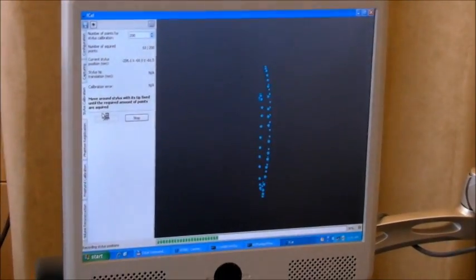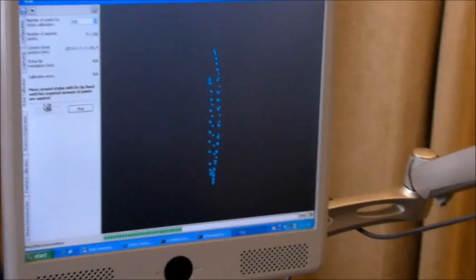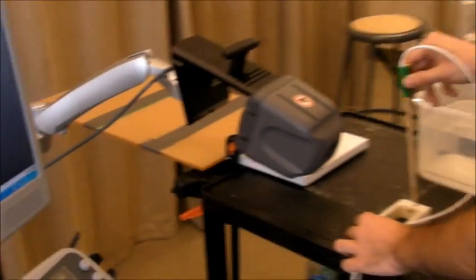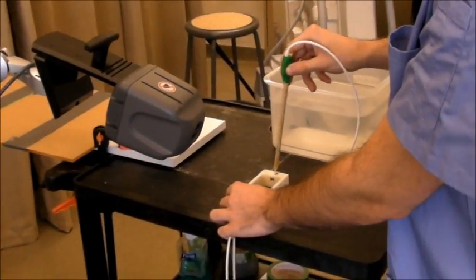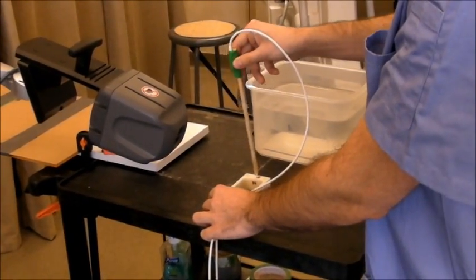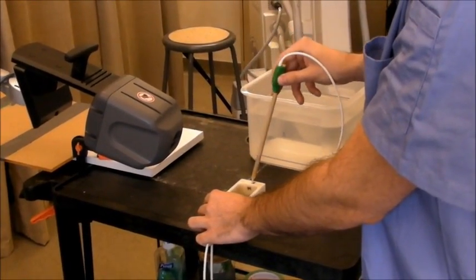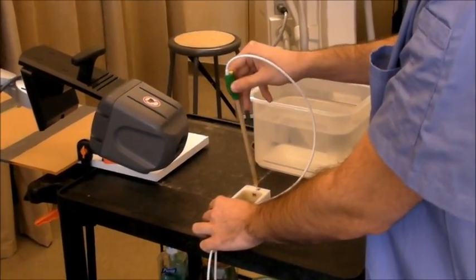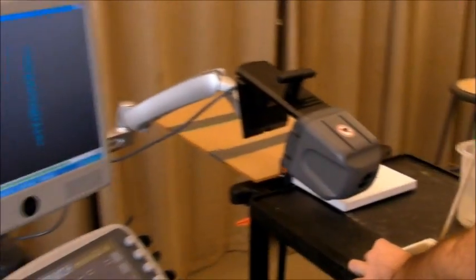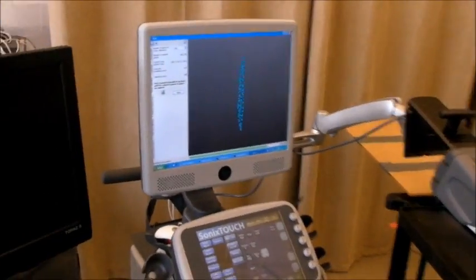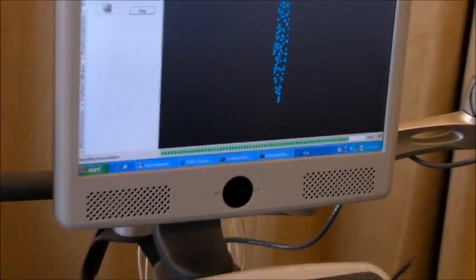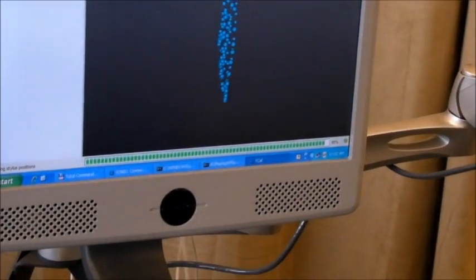I'll move the stylus, not very quickly, around. You can see the points collecting, and the progress bar shows how close you are to finish the process.